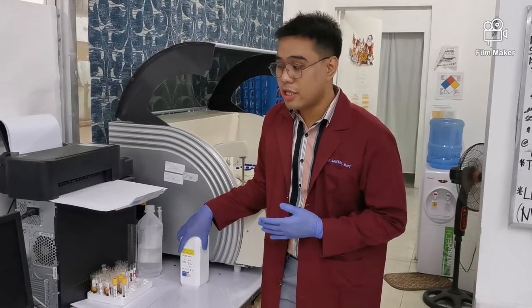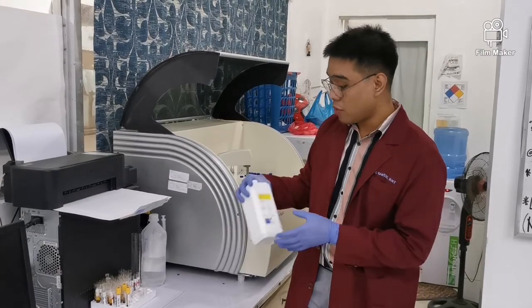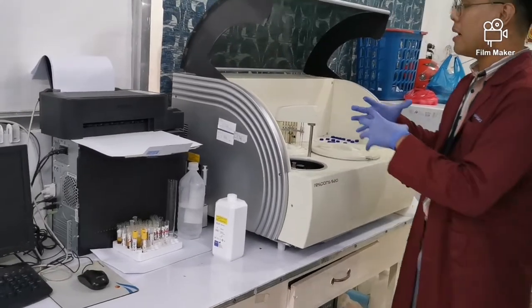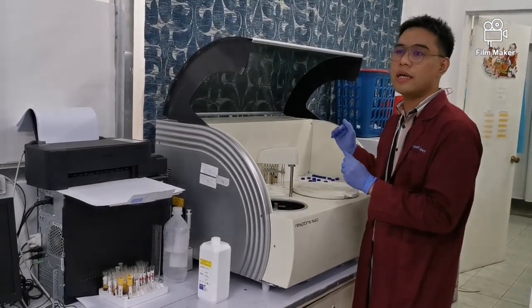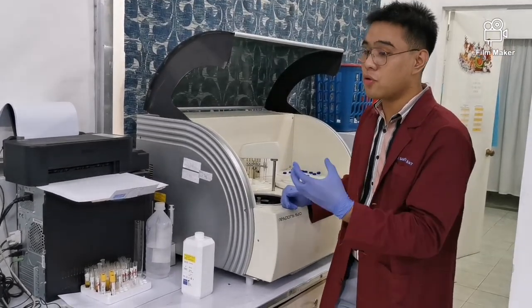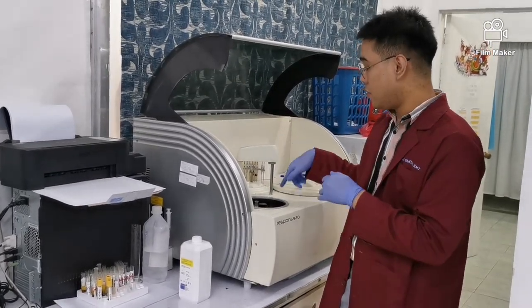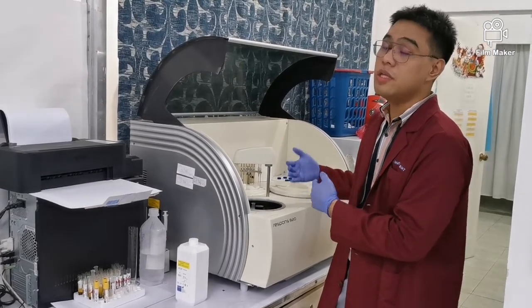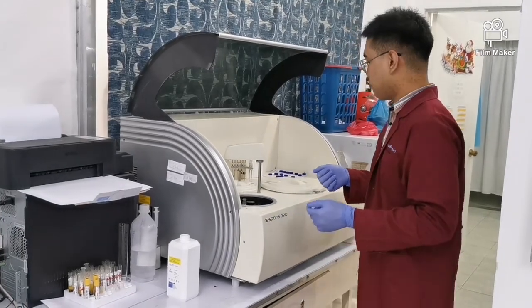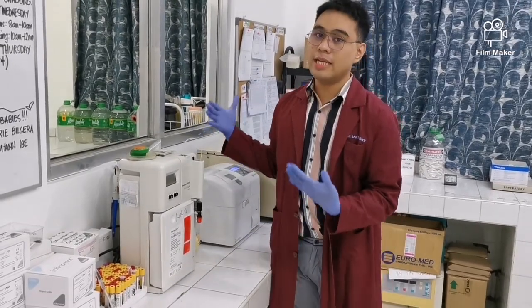So in the clinical chemistry section, you will really see a great many chemicals and reagents here, like cleaning solutions, distilled water, and waste. This machine is really involved. Even if just a small variable or factor happens to your reagent, for example, it deteriorates, the quality or the result it gives will really be affected. So it is no longer accurate. And what is our goal in our results, right? Accuracy and precision. So there, the reagents. This is also part of our clinical chemistry section, okay?